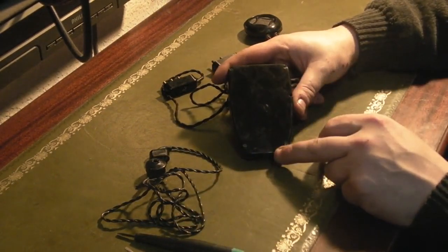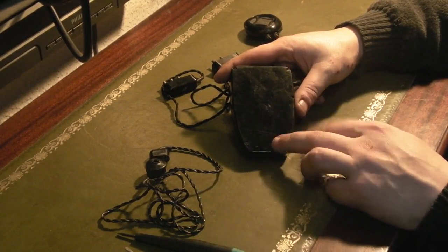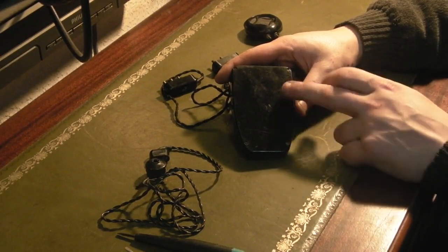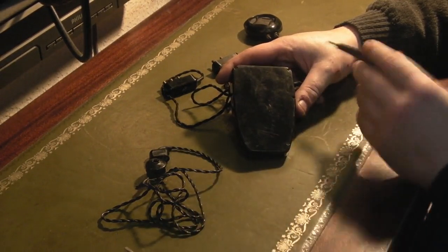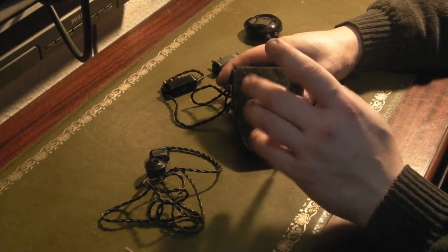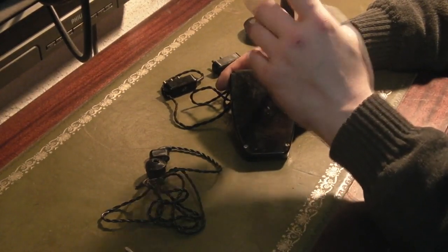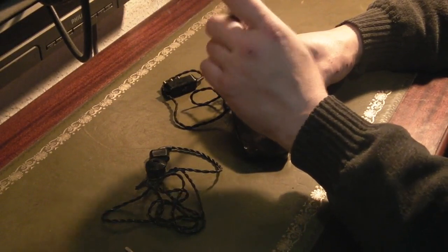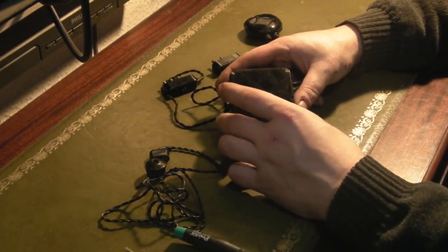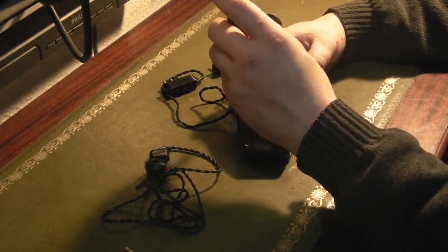Let's have a look in the main unit and see what type of valves this uses. Actually, from reading the Practical Wireless article on converting these to a radio — which I do have somewhere in my Practical Wireless collection — I believe it uses super miniature wire-ended valves. These were actually a product of the Second World War, a type of valve developed for use in various things during the war — possibly field radios or something like that. I think this type of valve is pretty much a direct evolution of those. I do have some older wire-ended valves kicking about somewhere — I think they're triodes, though the ones I've got are Russian and from 1960s guided missiles.